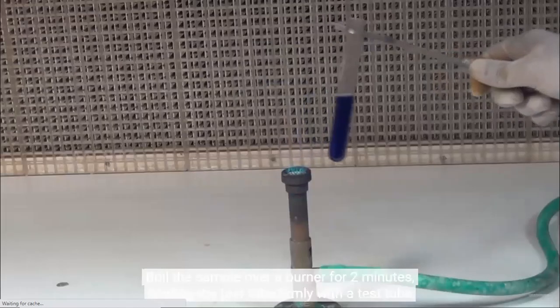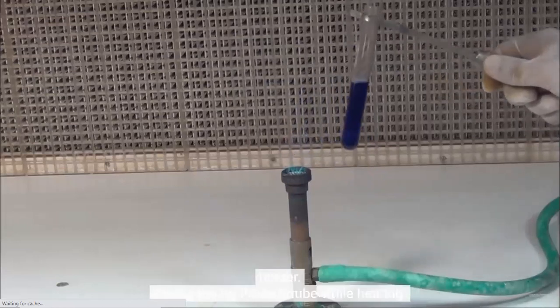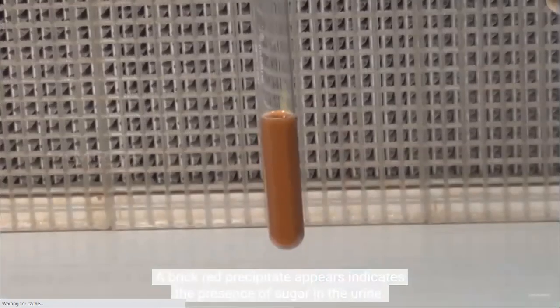Boil the sample over a burner for 2 minutes, holding the test tube firmly with the test tube holder. Keep shaking the test tube while heating. A brick red precipitate appears, indicating the presence of sugar in the urine.